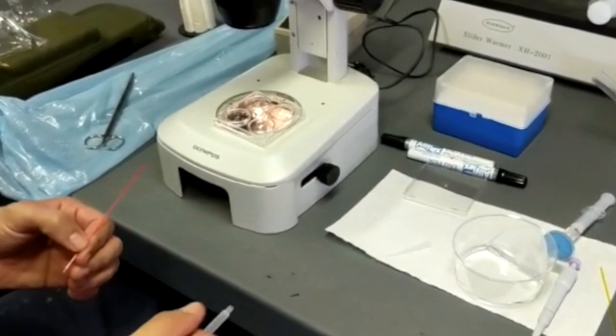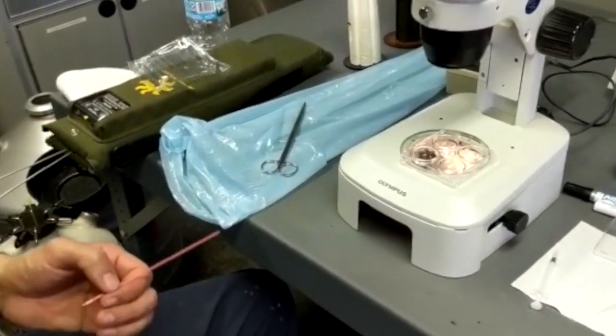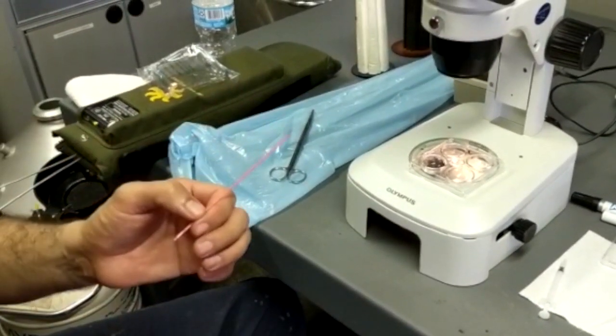The whole process doesn't take too long and can save us a lot of money as we recover all these embryos.